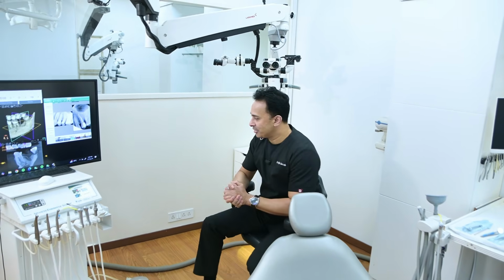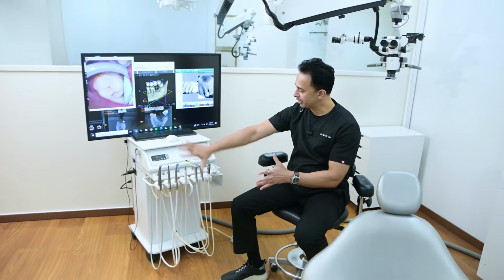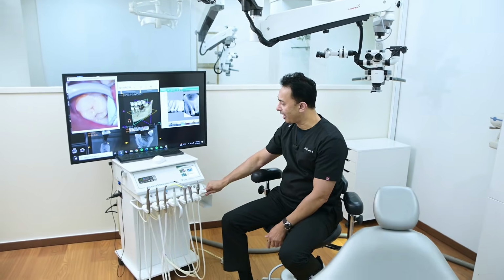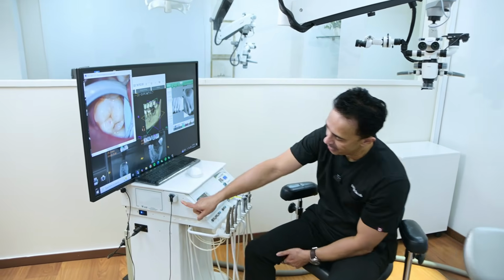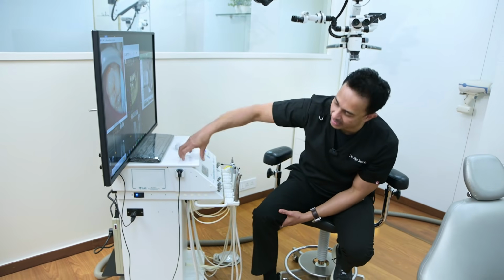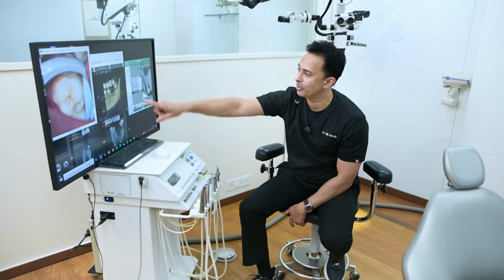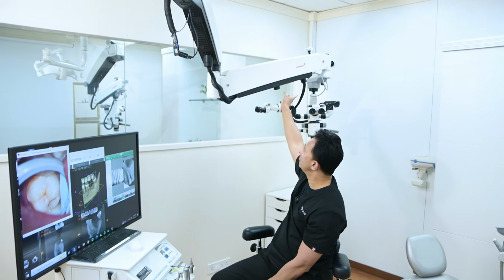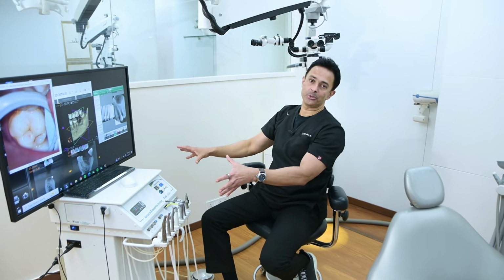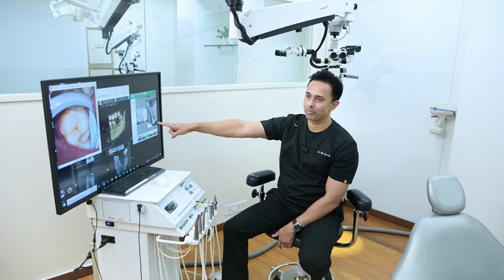Some of the other components that you see, as I mentioned, we have a cart-based operatory. So a cart gives you a lot of flexibility. All the tools that we need are attached to the cart, including your hand pieces, your scalers, your RVG or digital radiograph system. You can have your sensor, which is connected to the port, which has a CPU on the inside. The cart enables you to have a computer on the inside. So the digital X-ray is connected here. The photographs that you see that we click through the microscope, that too is connected into the CPU here. So we have a system where whatever documentation you do, including the X-rays, the pictures, everything gets captured into the CPU on the cart and is on display on the monitor here.